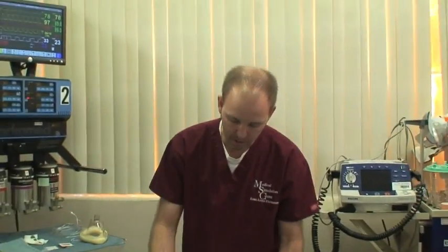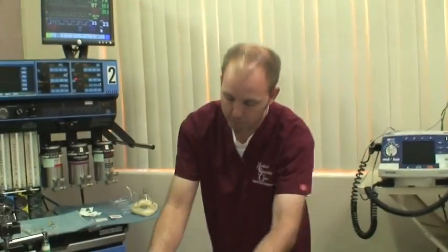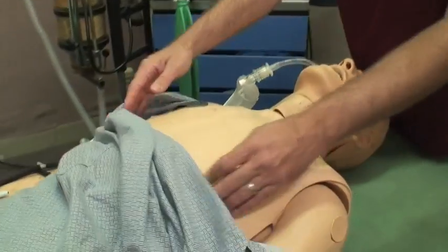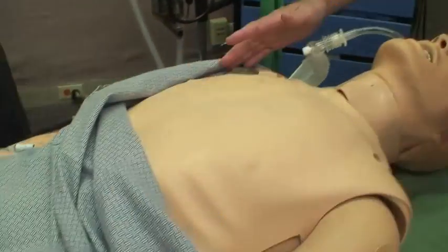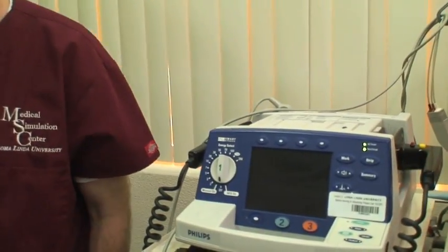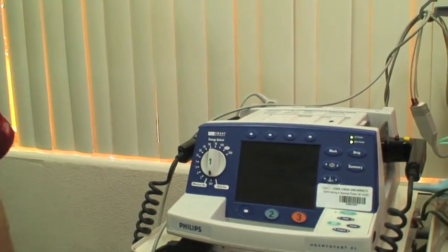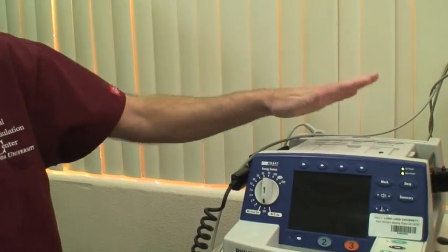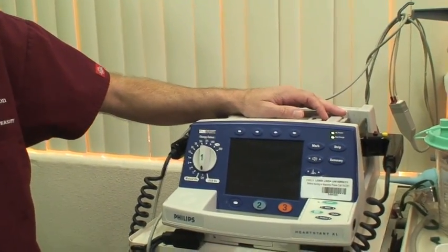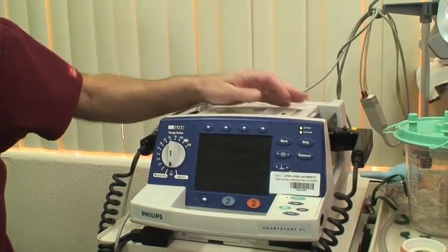He has the ability to be defibrillated — which everybody has probably seen on TV where they take a machine and shock the patient. He's got a post here so we have a real defibrillator, and Sam will absorb real joules of shock.